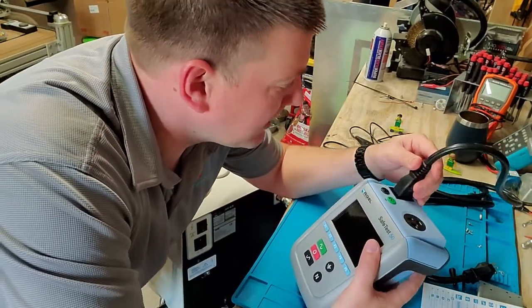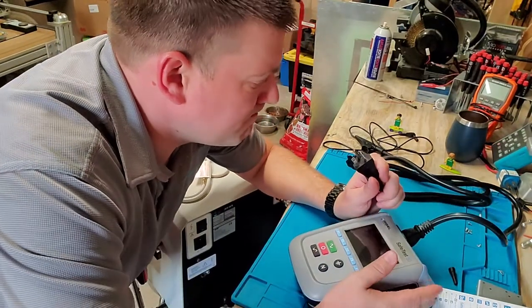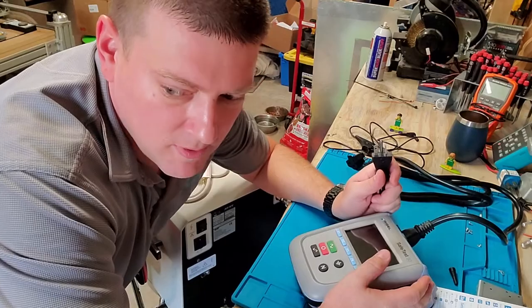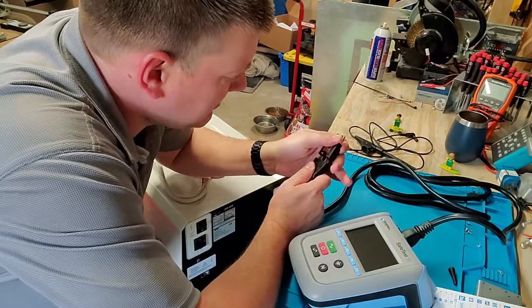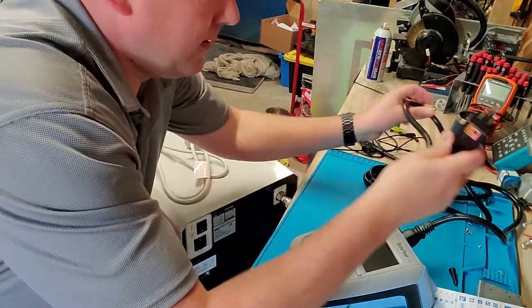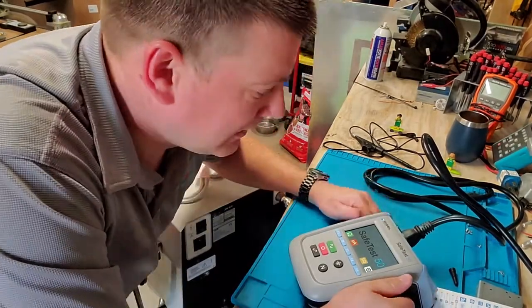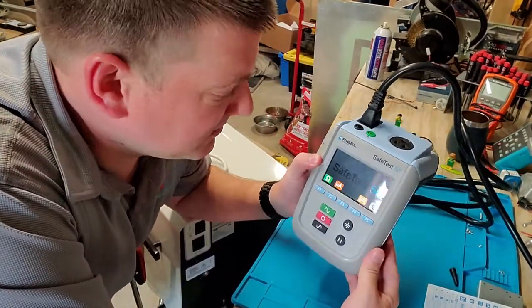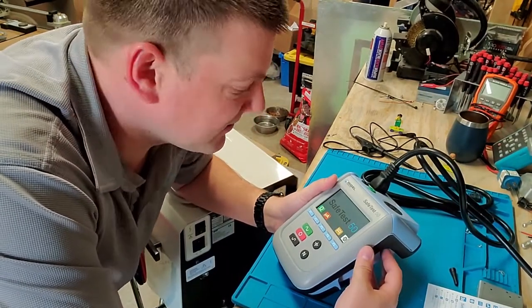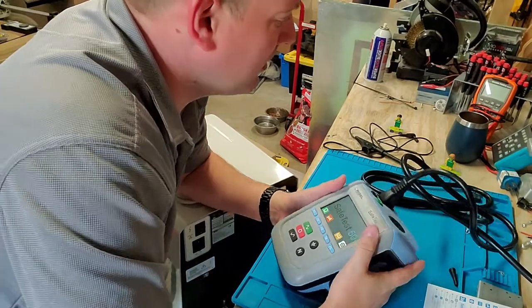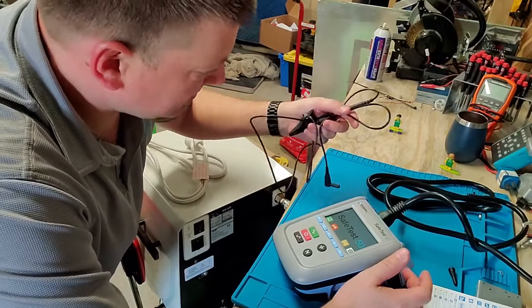First thing I'm going to do, take my 20 amp IEC, plug it in. I don't have 20 amp plugs here in my garage, but I got this little adapter. Wow guys, that was almost an instantaneous boot up, which means you could plug and unplug this thing all day long and it would just be ready to rock and roll.